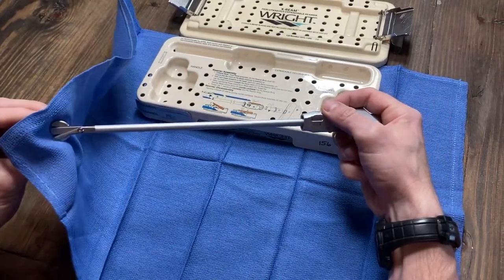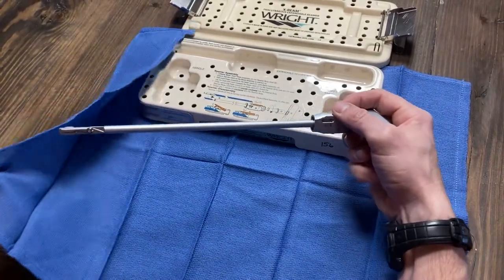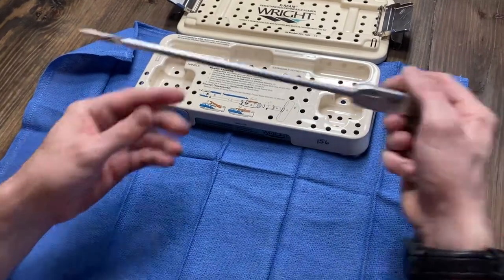I'm not going to touch them with my fingers, but if you squeeze them with a towel or something, they go all the way back in and then you can pull that out of the patient. And that's it.